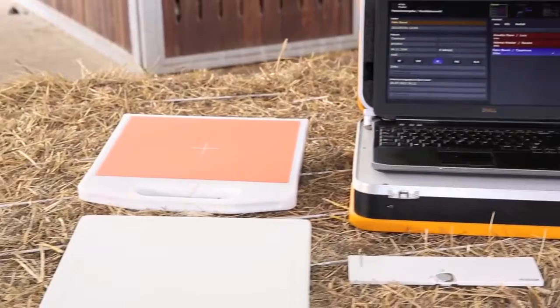The Leonardo Mini system guarantees a constant and fast workflow with high quality images and, with its compact size, it fits everywhere.